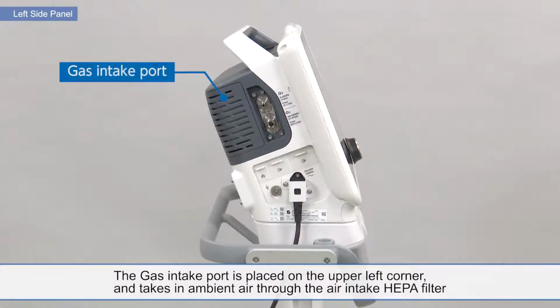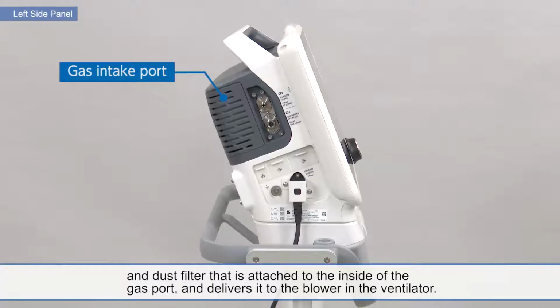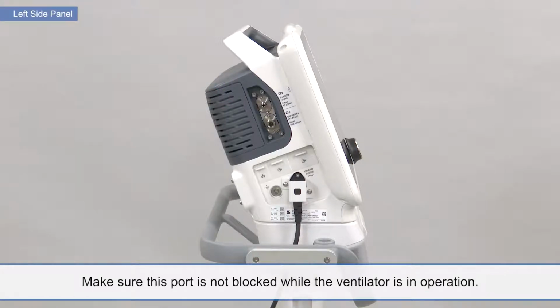The gas intake port is placed on the upper left corner and takes in ambient air through the air intake HEPA filter and dust filter that is attached to the inside of the gas port and delivers it to the blower in the ventilator. Make sure this port is not blocked while the ventilator is in operation.